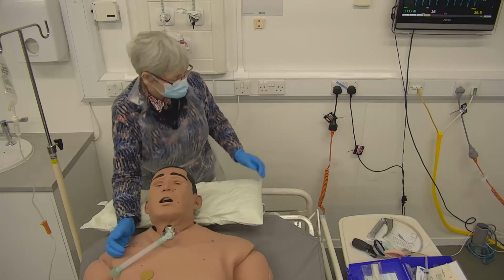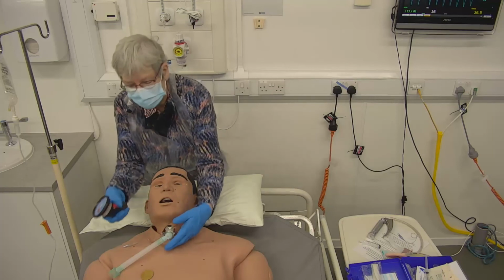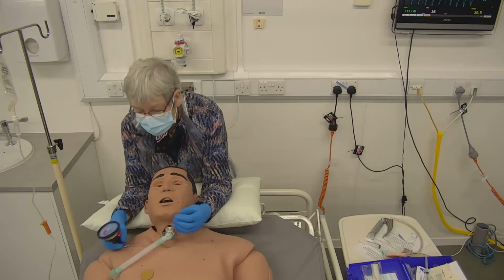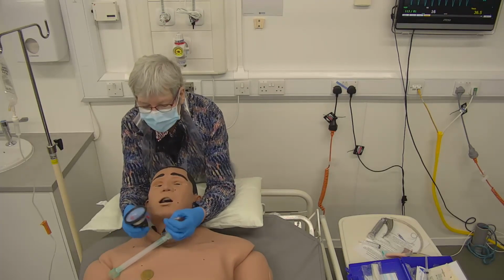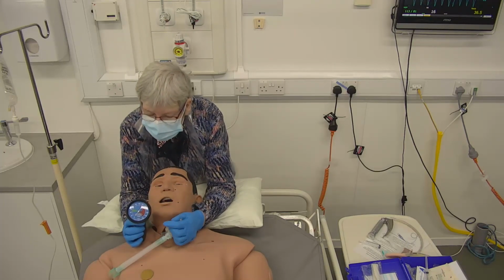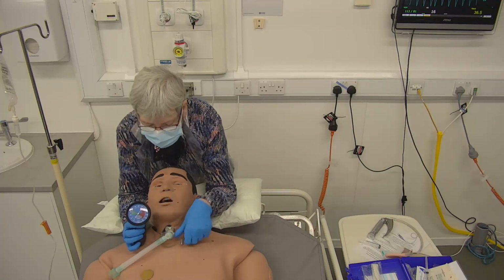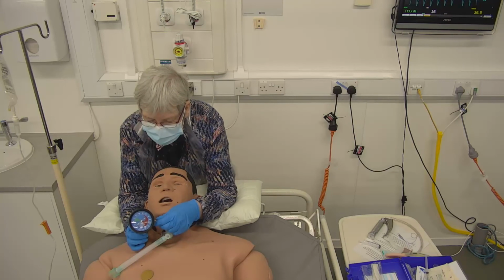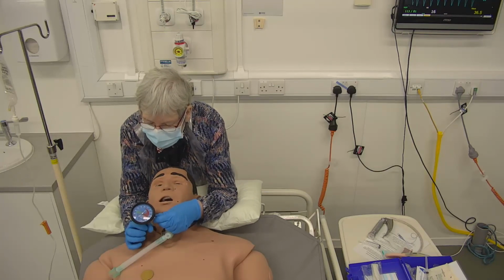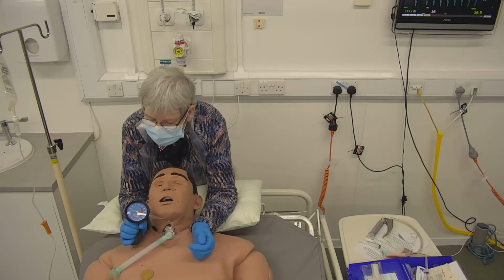So there is a way of checking the pressure in the balloon that's securing things, and that's using this. You can see here in the dial that there is a green bit but also a red bit. So if I insert this, you can see that it's not actually raised at all. But if I pump it up a little bit, you can see that we're now on the green, just about.